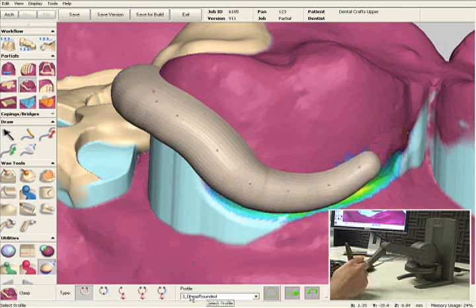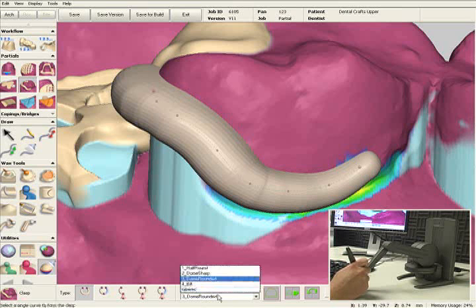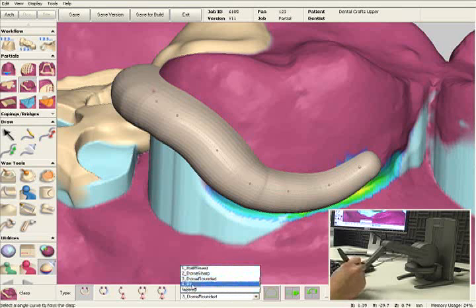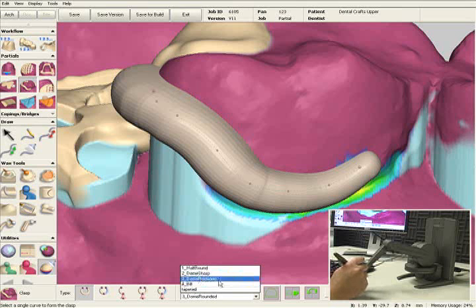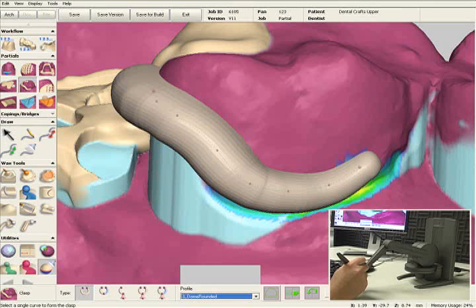We also have different profiles for the clasps. Right now I've got four different profiles in my library, and you can have as many as you want. You can name them anything you want, so if you have a particular clasp that a certain doctor likes, you could name them after the doctors and preset the settings for that particular clasp according to their preferences.